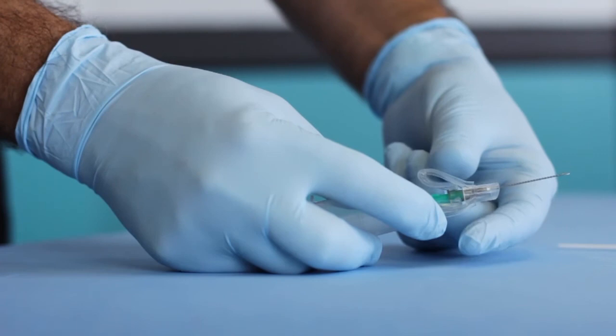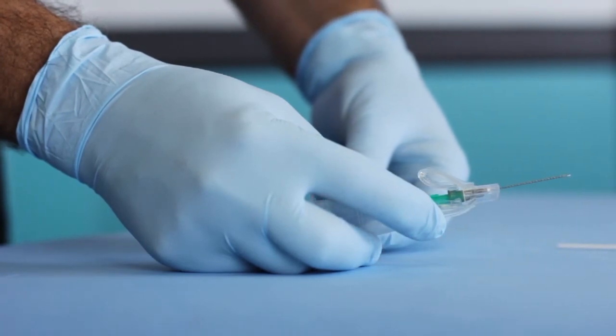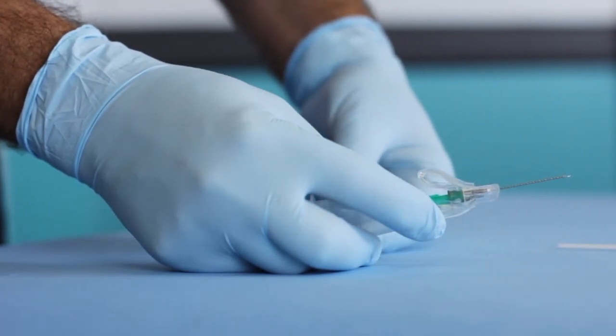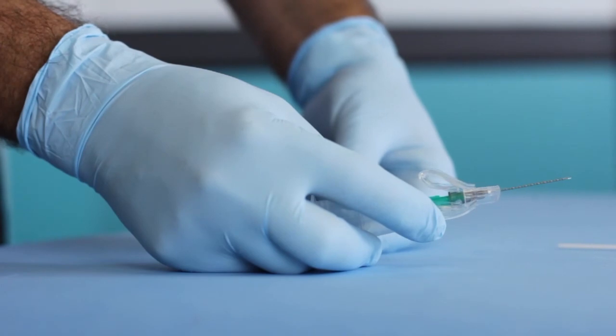Keep the needle activated by holding the device in the activated position with the middle or index finger.